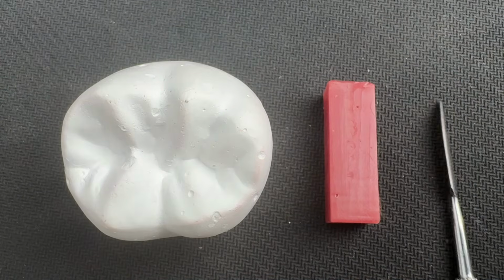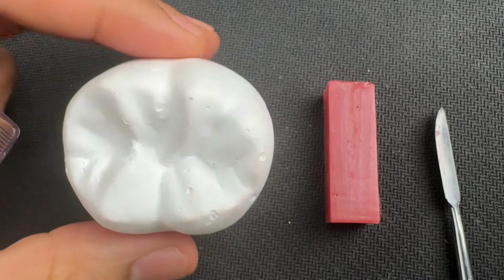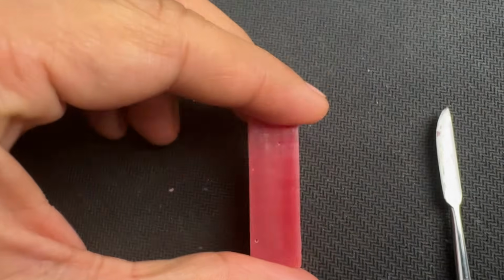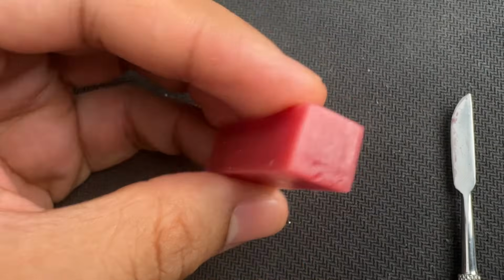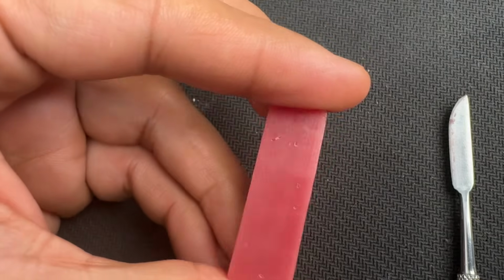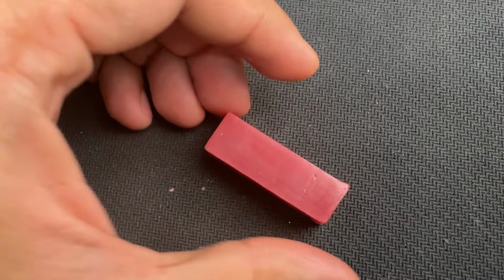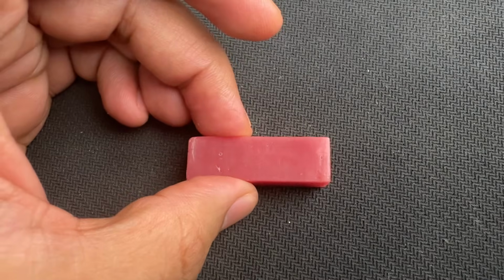Okay, now let's see the carving steps that are involved in getting a permanent mandibular first molar. We understood the features, let's carve it. Now let's use this wax block. I've already made it uniform. You can check the block for any air bubbles or air voids. If it is there, please change the block. If not, continue. Now the most important step is establishing the crest of contour, just like how we did for a maxillary molar.